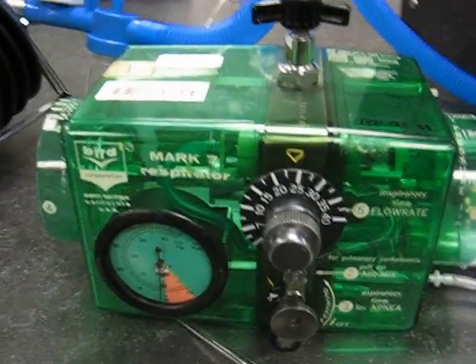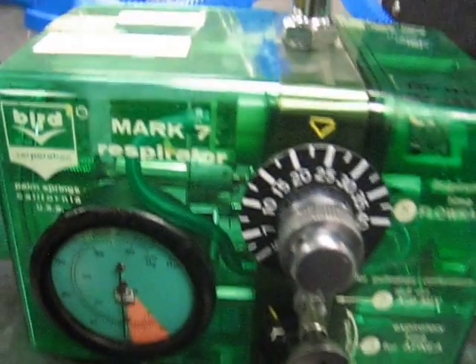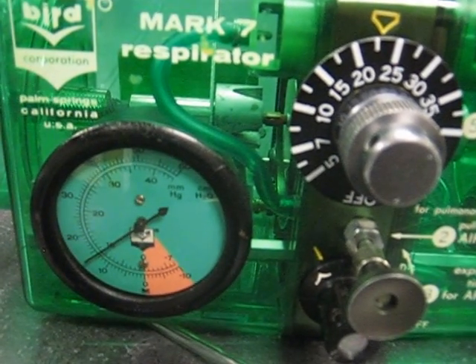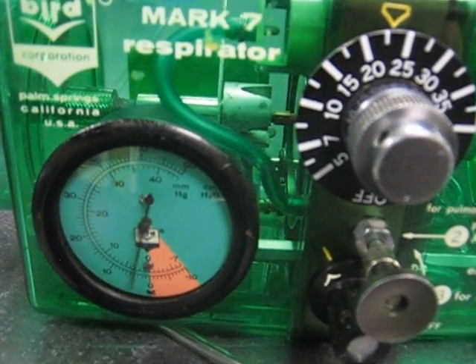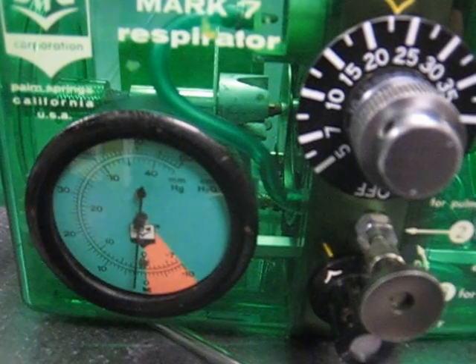Now, I want to watch the manometer when I trigger this breath. It should go back to negative 2. It's just negative 1, negative 2.